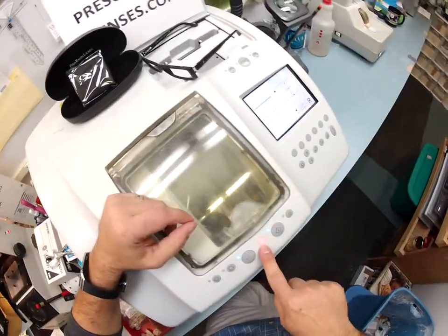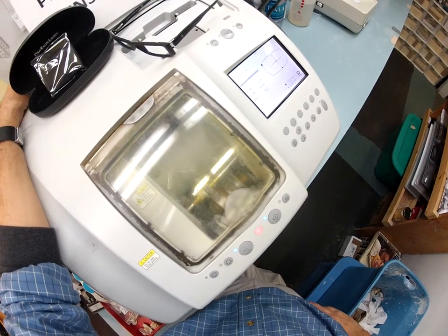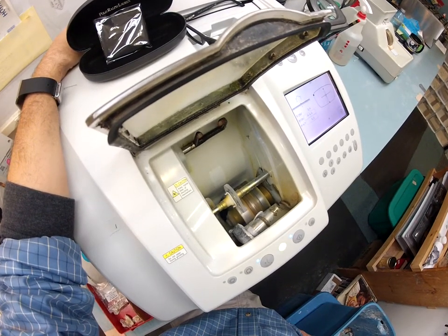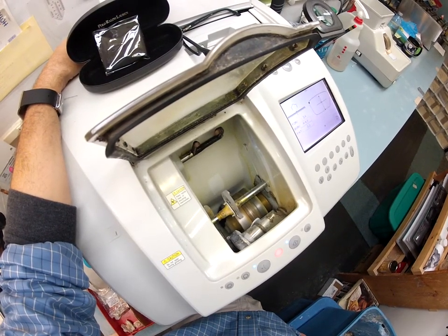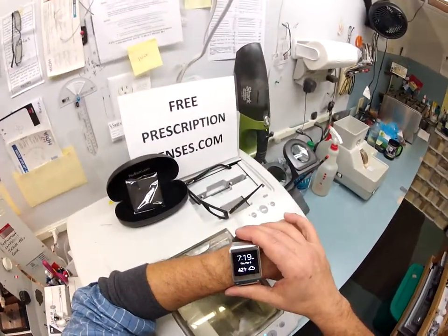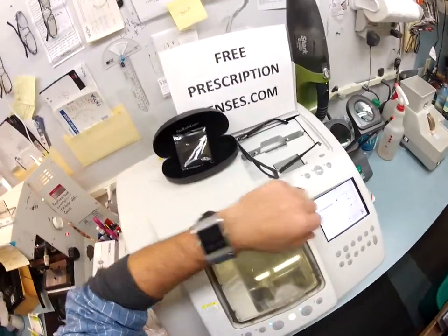You can check out my disco light that's going off here — I don't know what's up with that. You'd think for $30,000 you'd make a light that works properly, but that's the only thing messing up on my old machine. I suppose I can live with it. This whole process is going to take about 15 minutes — it's 7:19 on Thursday, March 6th, 42 degrees in my hometown of Durham, North Carolina, according to my Samsung Gear Watch.